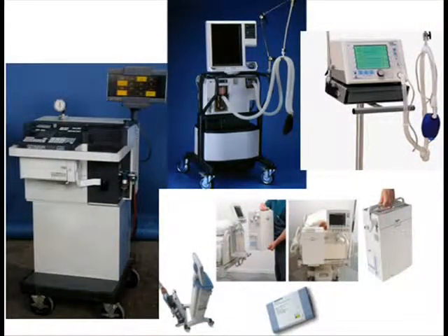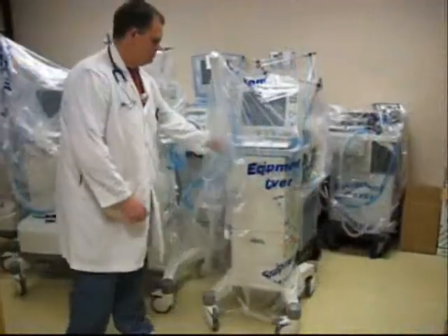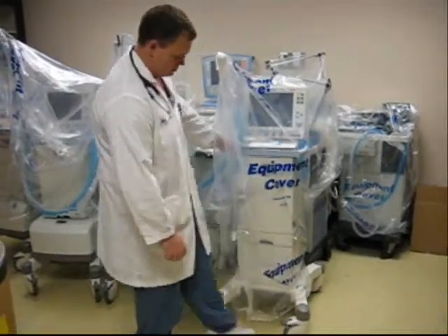Carefully choose the ventilator according to its capabilities, which may include but are not limited to modes for both invasive and non-invasive ventilation, portability, battery backup, the presence of a compressor, and graphical display.